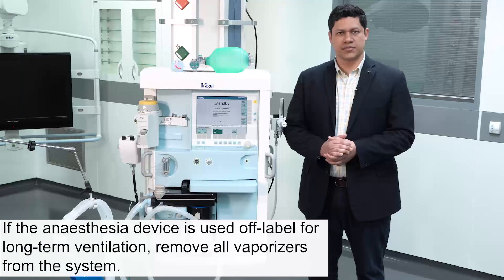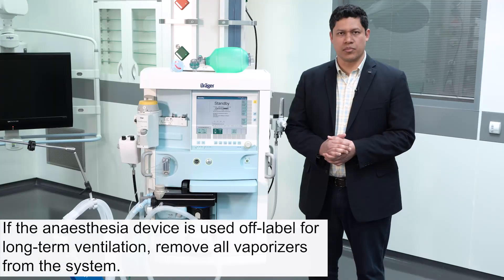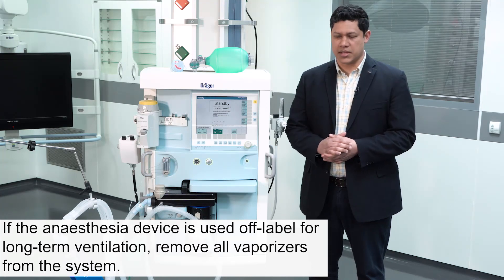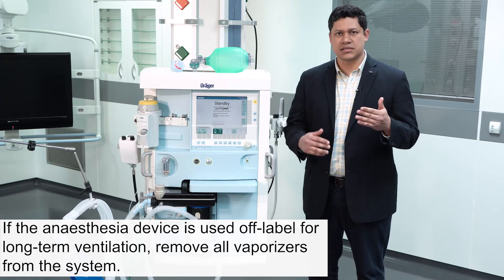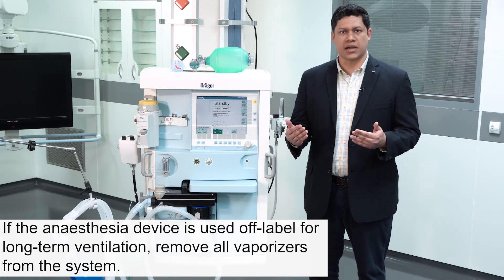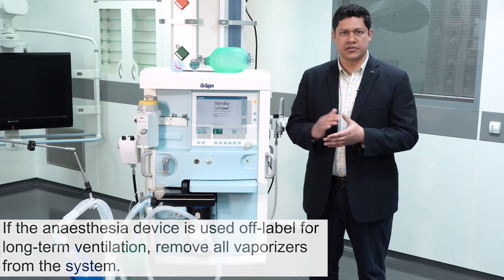The objective of this video is to make a clear differentiation between the anesthesia device and the ICU mechanical ventilators.